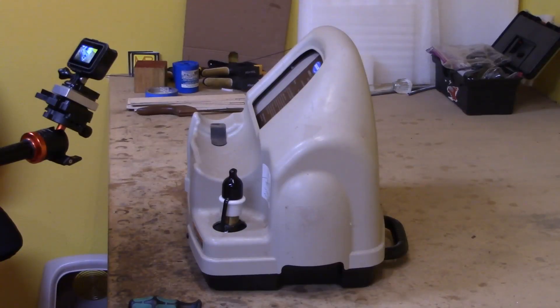So with that out of the way, let's get over to the bench. With all the disclaimers out of the way, I think I'll get to work here replacing the seals on this unit.